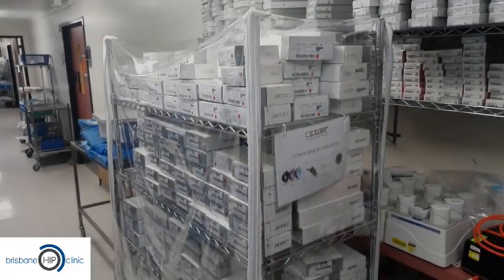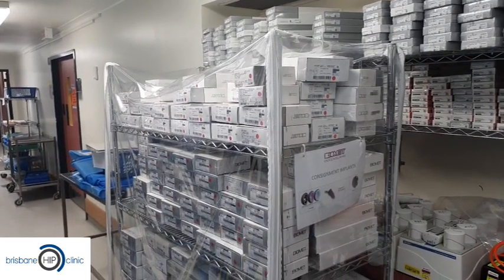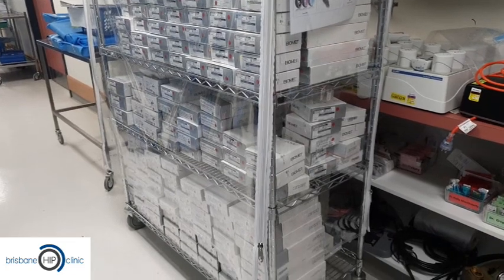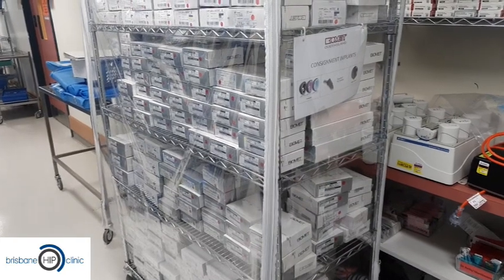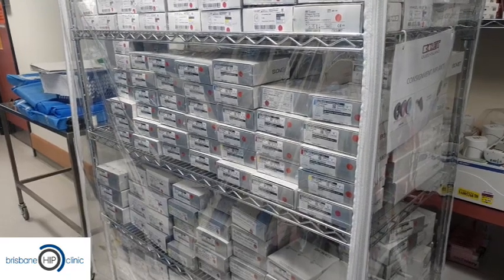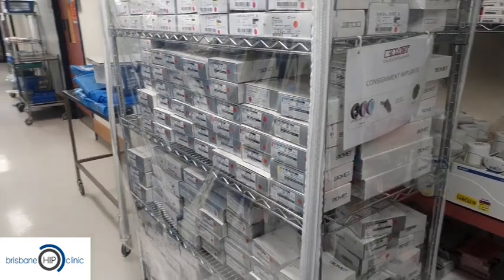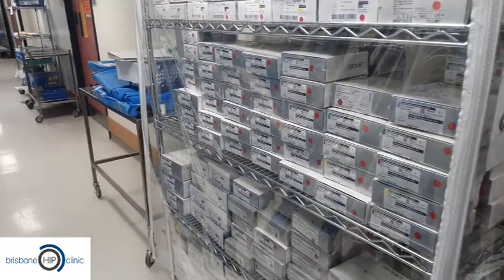During the operation we have the ability to use any combination of these implants together to provide a personalised solution to the patient's anatomy and requirements. The decisions we make will be based on things like soft tissue length, the strength of the bone, the size of the bone, the density of the bone, stability of the joint in motion, and what the patient is going to be doing with their hip postoperatively.